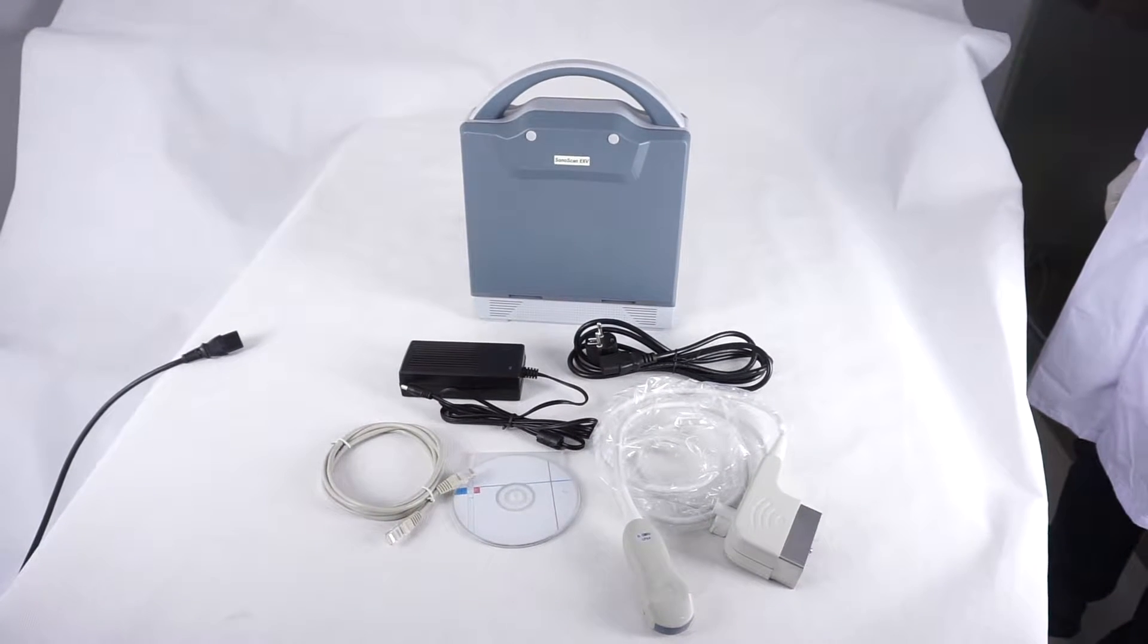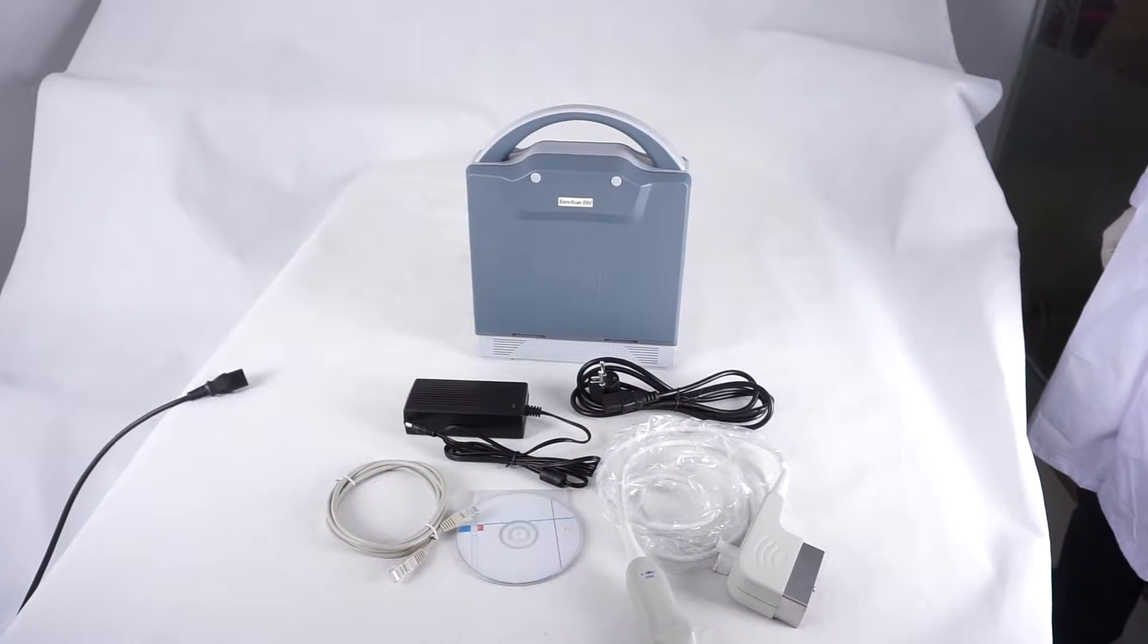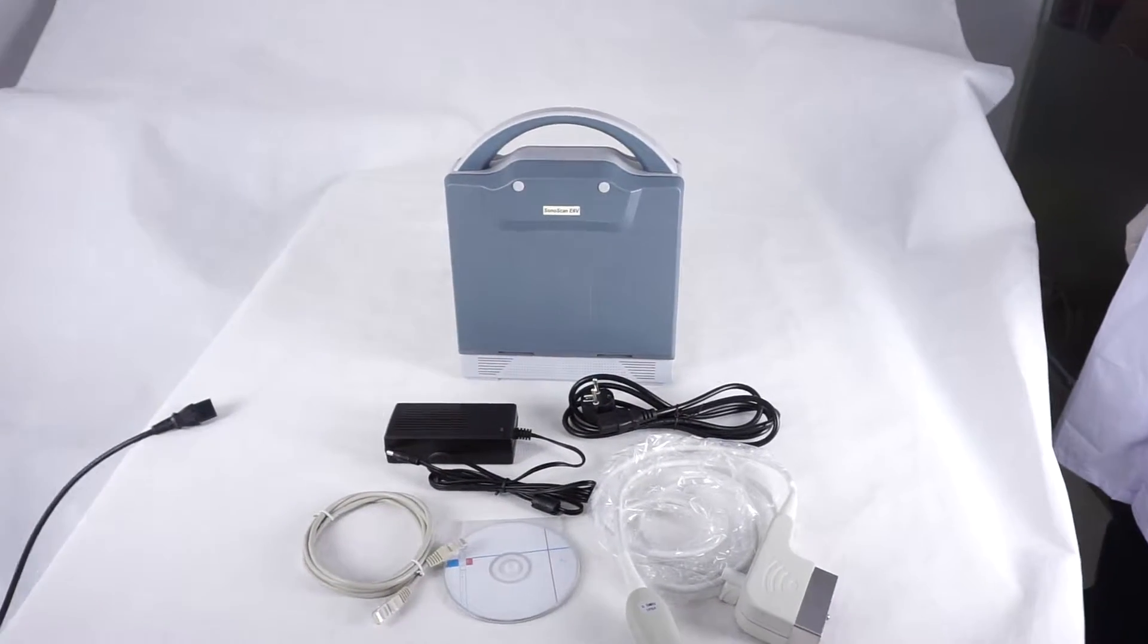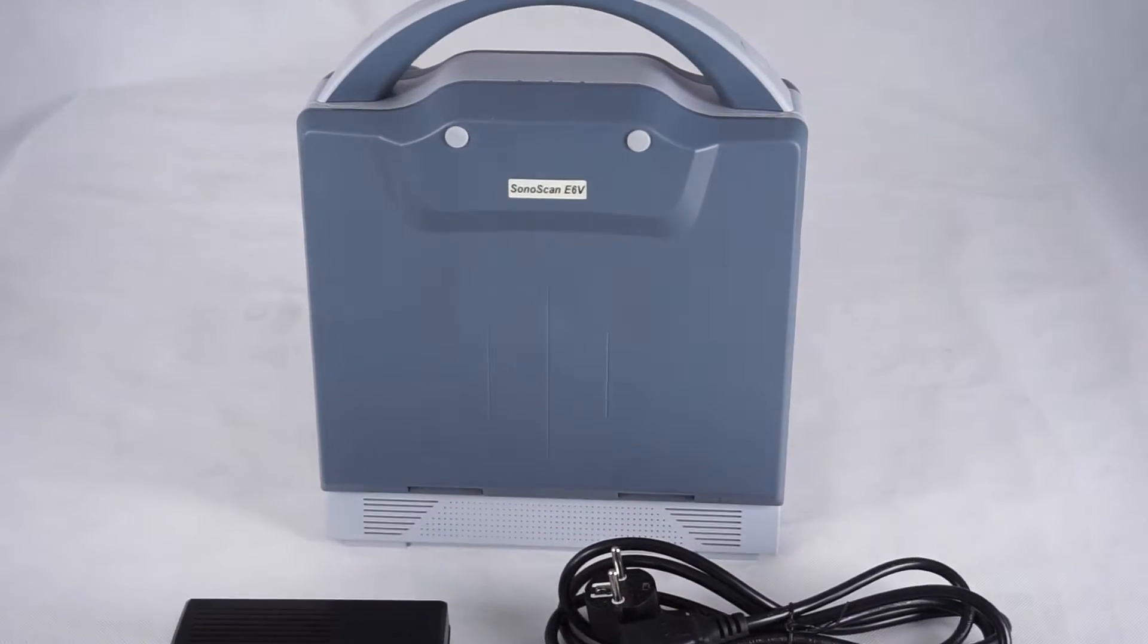Today I will introduce our new design portable veterinary ultrasound scanner. The model is Sonoscan E6V.